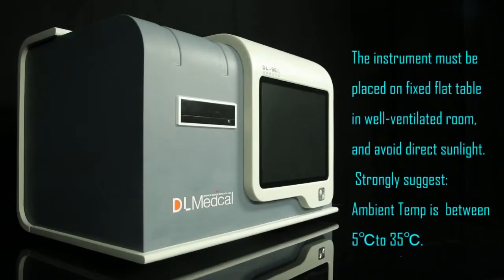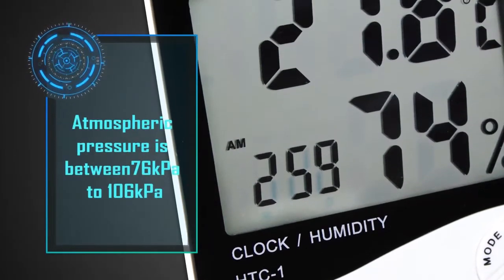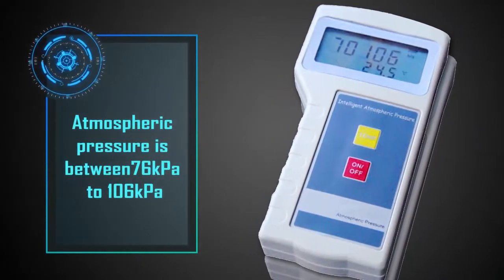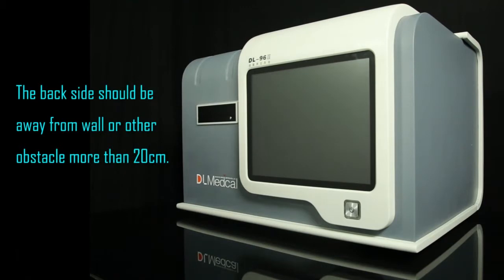The instrument must be placed on a fixed flat table in a well-ventilated room and avoid direct sunlight. We strongly suggest the ambient temperature be between 5 degrees Celsius and 35 degrees Celsius, relative humidity less than 80%, and atmospheric pressure between 76 kilopascals and 106 kilopascals. The backside should be more than 20 centimeters away from a wall or other obstacle.